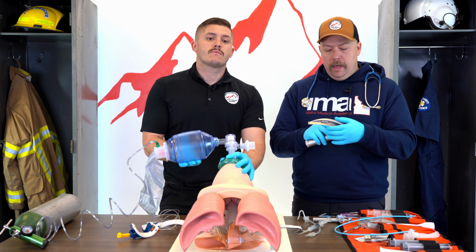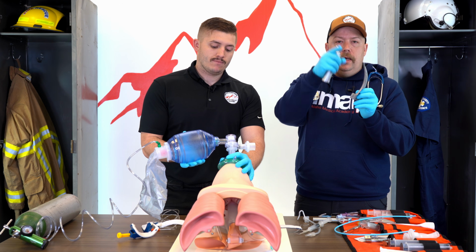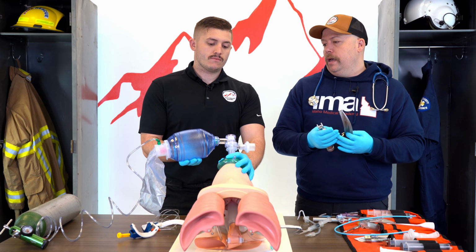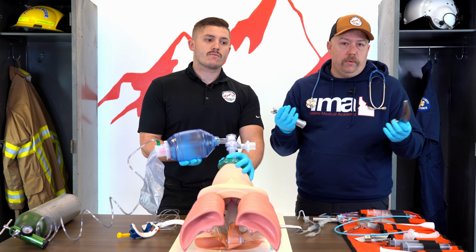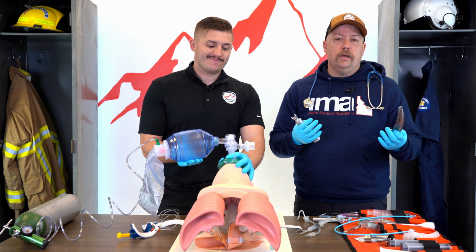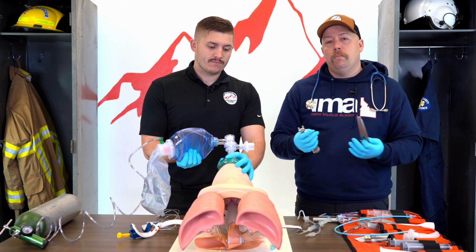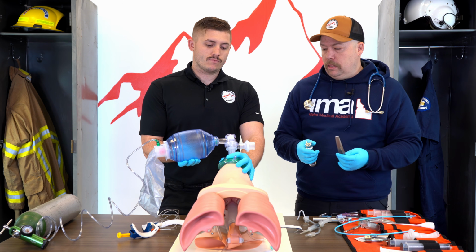I remember Macintosh is the curved blade because it's like a Macintosh apple, and apples are curved. That's how I remember it. However you remember it is fine. But just ask your partner what blade selection they would like, because again, we're prima donnas, and so we're very particular. I prefer Macintosh blades. Some people prefer Miller. And you might have what's called a glidoscope or some sort of video laryngoscope. And again, they'll be able to tell you what size blade that they want.